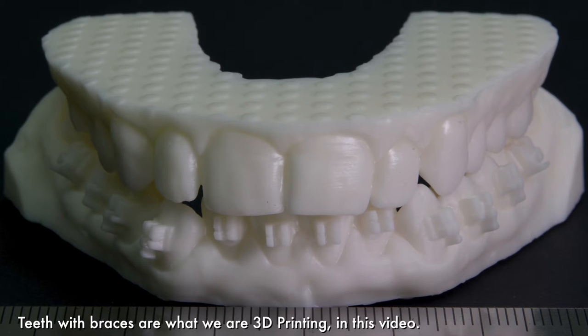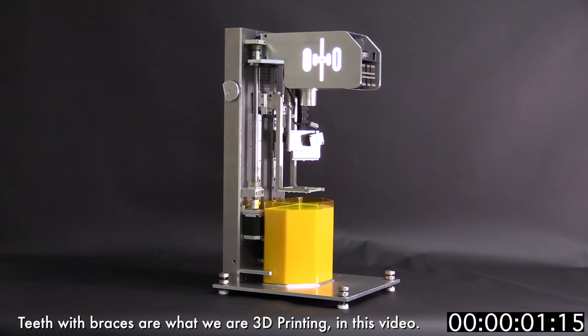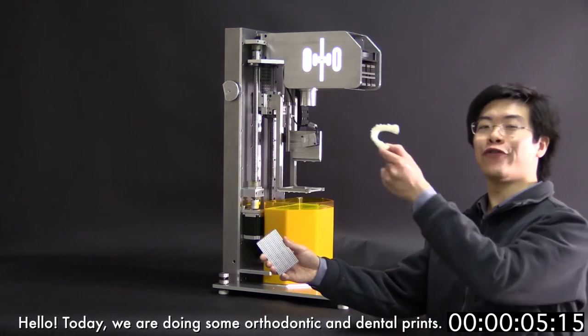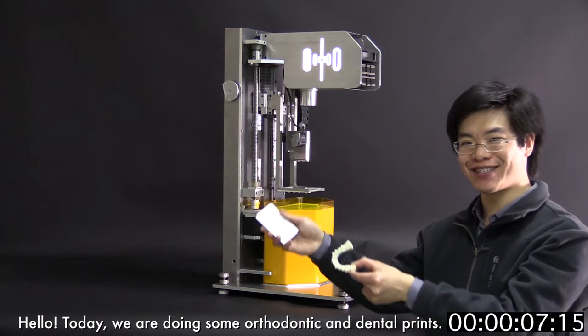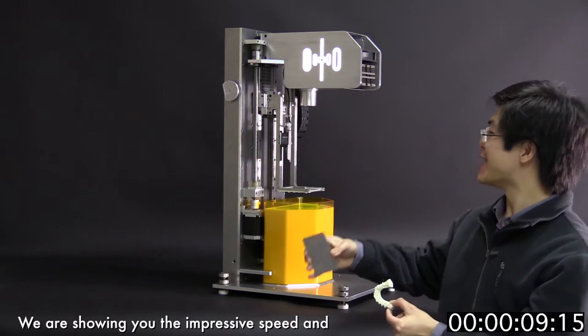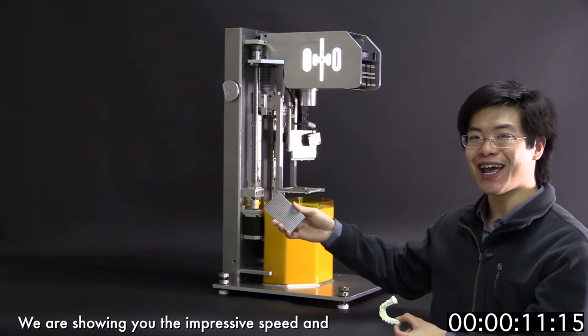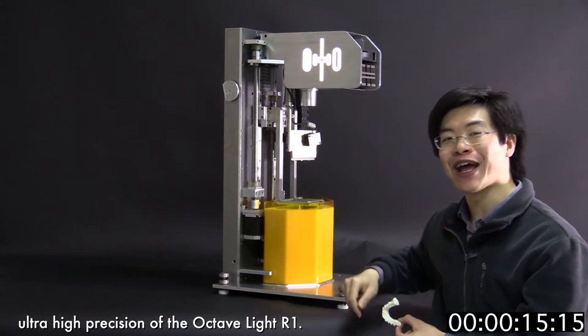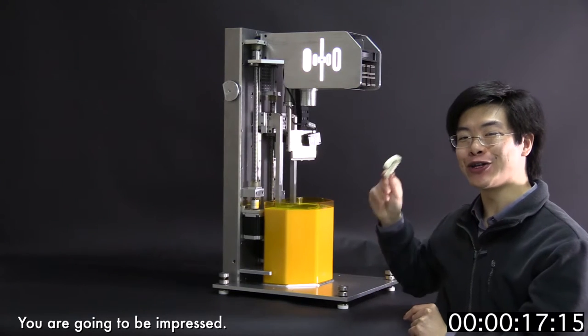Teeth with braces - what we are 3D printing in this video. Hello, today we are doing some orthodontic and dental prints. We are showing you the impressive speed and ultra high precision of the Octav Light R1. You are going to be impressed.